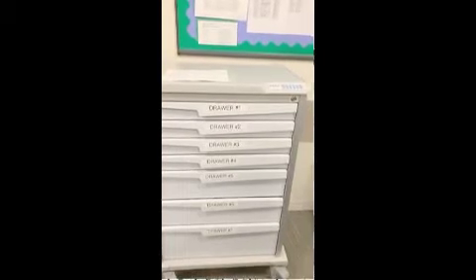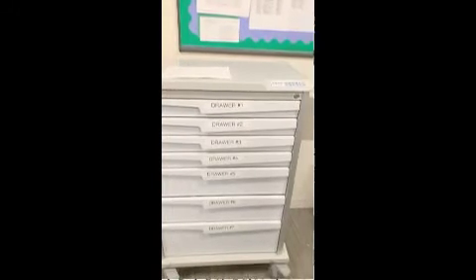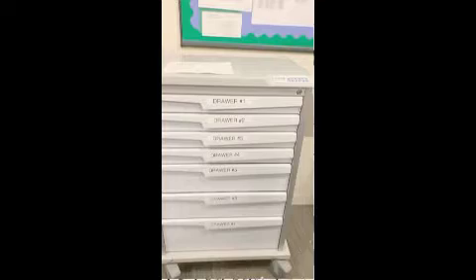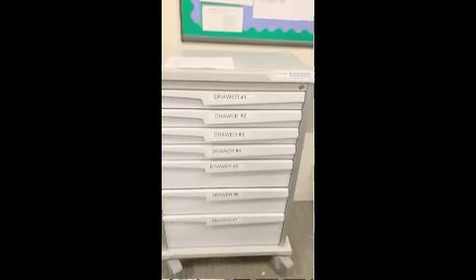A designated senior resident will be in charge of passing all materials needed into the patient's room to the intensivist. All materials that are removed should be noted and restocked by the charge nurse after intubation. We will now go through each drawer and discuss important items for the medical staff to familiarize themselves with. There will also be an inventory checklist attached to the top of each cart.